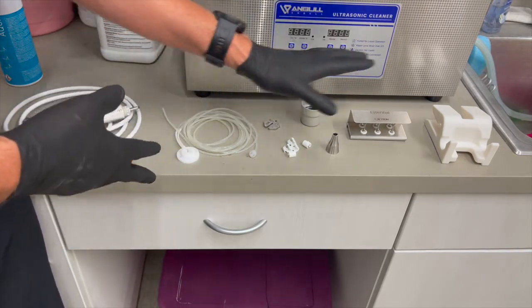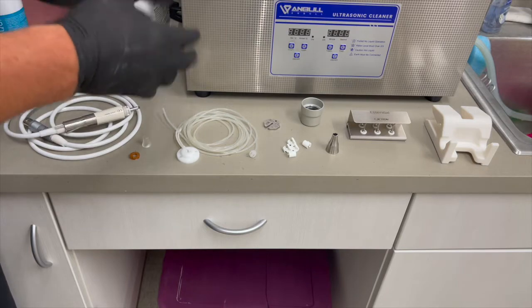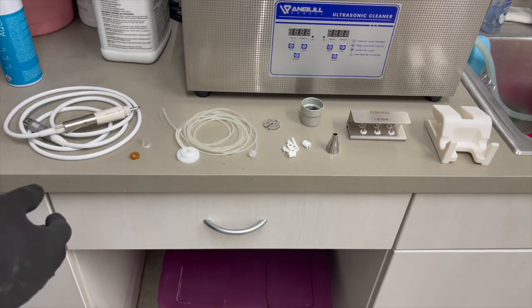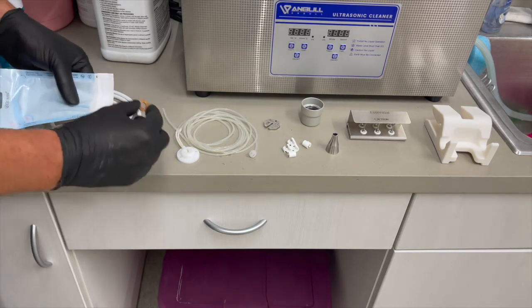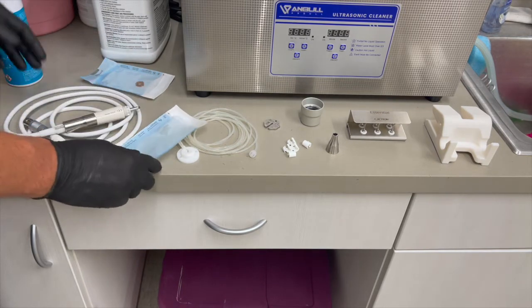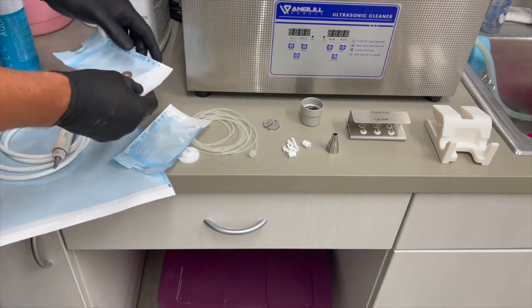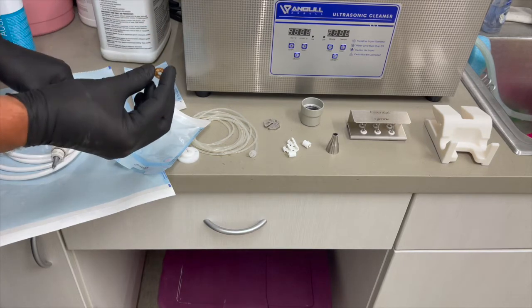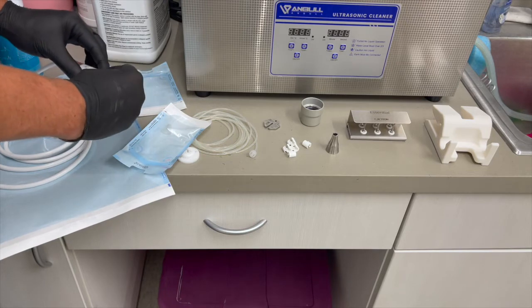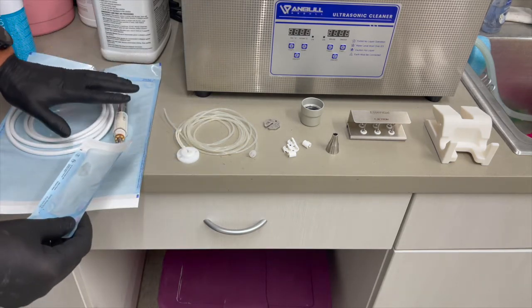The other items here can all go into an instrument washer or an ultrasonic. Let's assume all of these items have gone through the cleaning step — through the ultrasonic or instrument washer, rinsed out, and are now ready for the autoclave. From here we need to bag them. The manufacturer's recommendation is to put the light ring in a bag, the light guide in a bag, and the entire handpiece in its own bag. Personally, I'd suggest placing the light ring back inside the handpiece as a safety feature to avoid bending the prongs, without pushing it all the way in so steam can still encapsulate it.